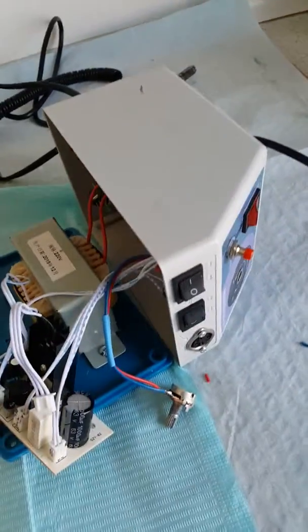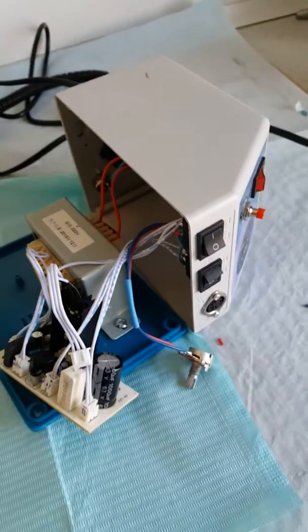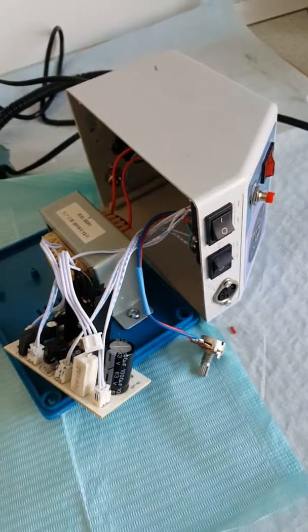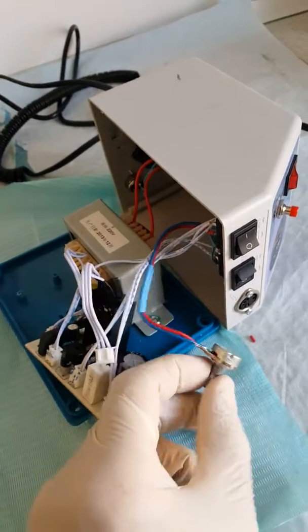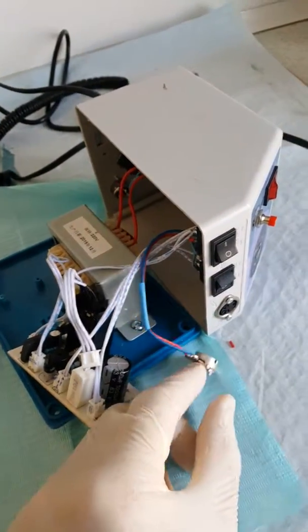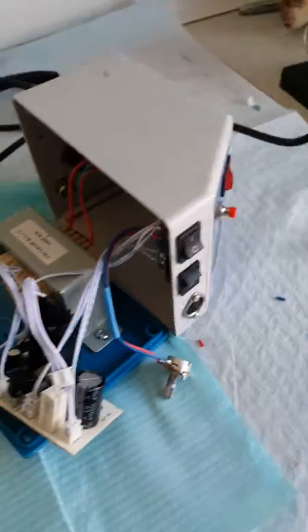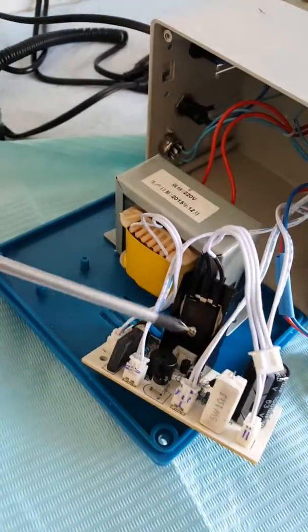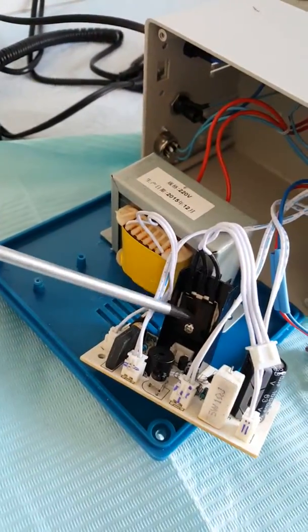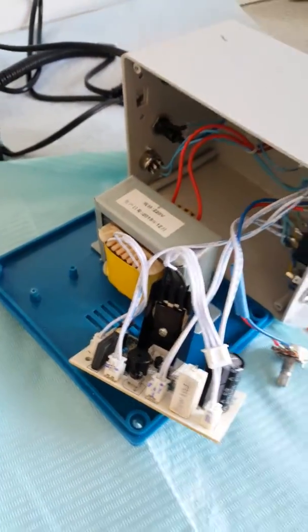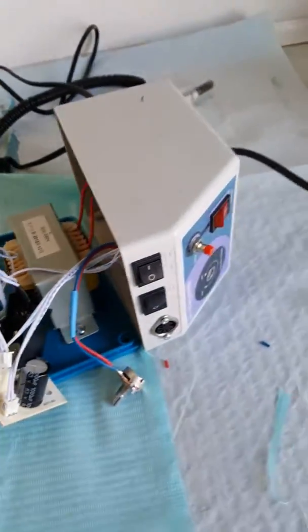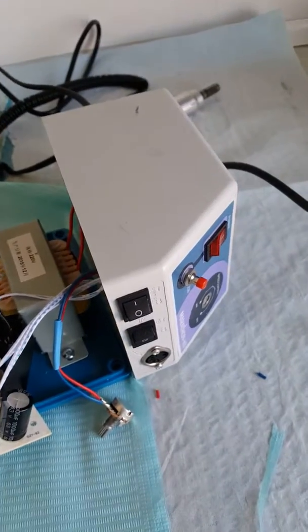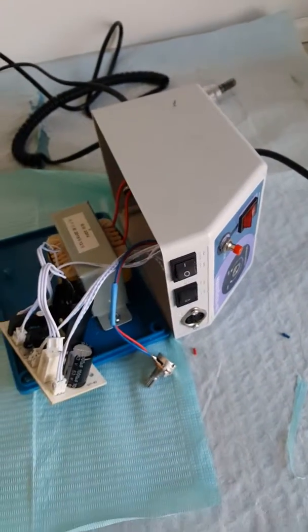So if this happens to you that it suddenly starts spinning at maximum speed and you cannot adjust it, probably it could be this little one there. So replace it and it would be good again. I hope this can help you. Bye.